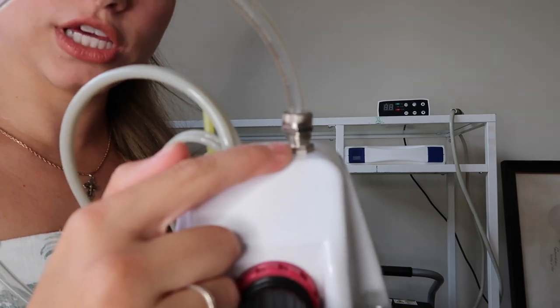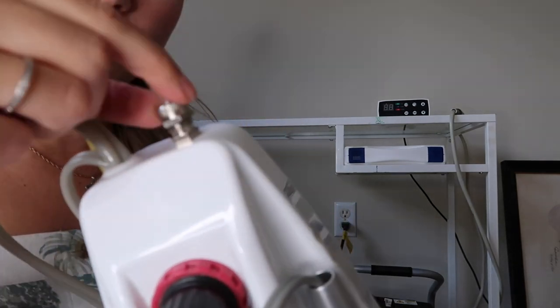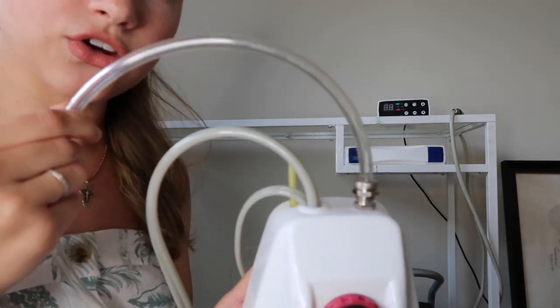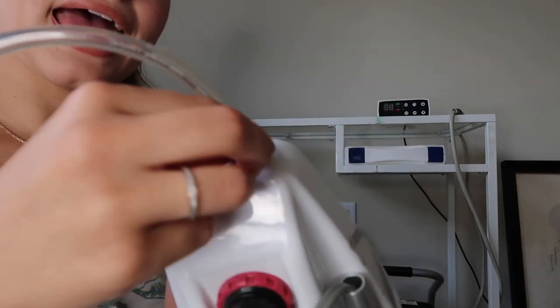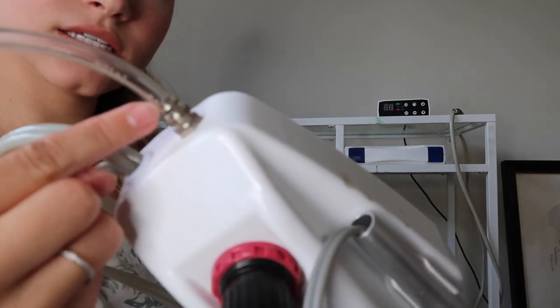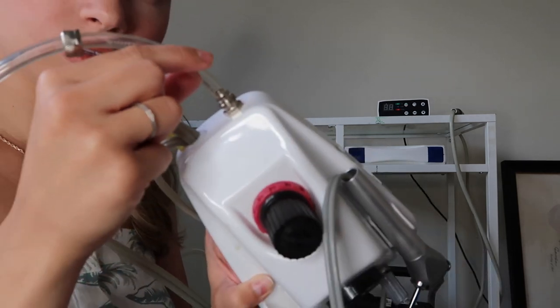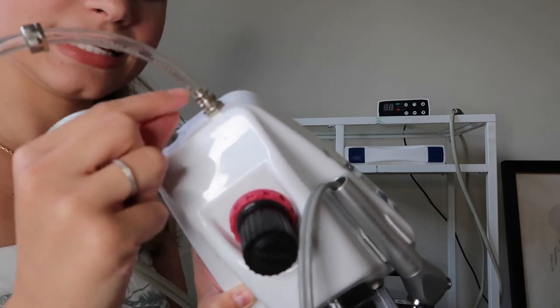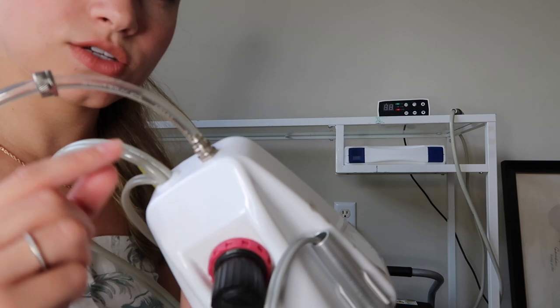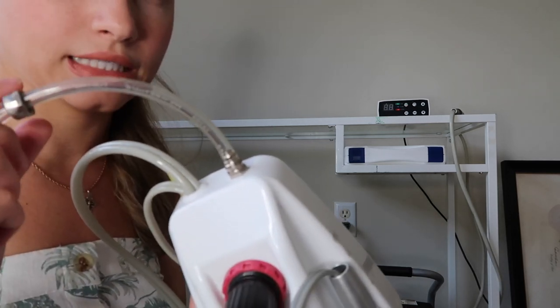Let me just show you how I did it. This bolt was attached to this part of the dental unit — you have to unscrew the bolt like so, and connect this tube that comes together in a kit with the dental unit, and attach this tube on this piece of the unit over here. You have to push it very well until this part becomes slightly fatter, to make sure it seats strongly, because the air pressure is strong and it would pop right out if you didn't connect it correctly.